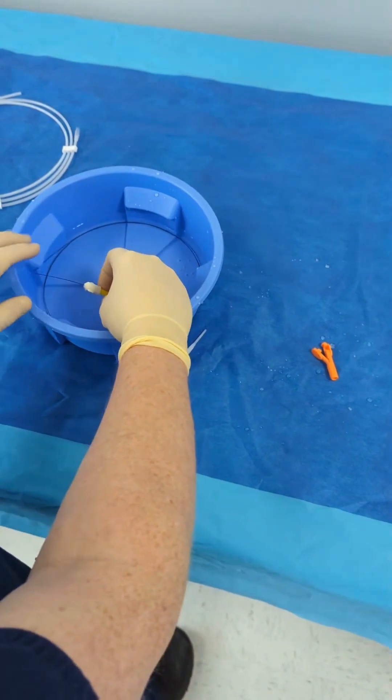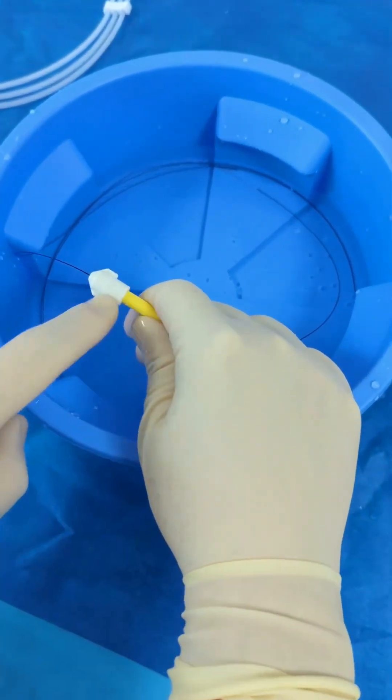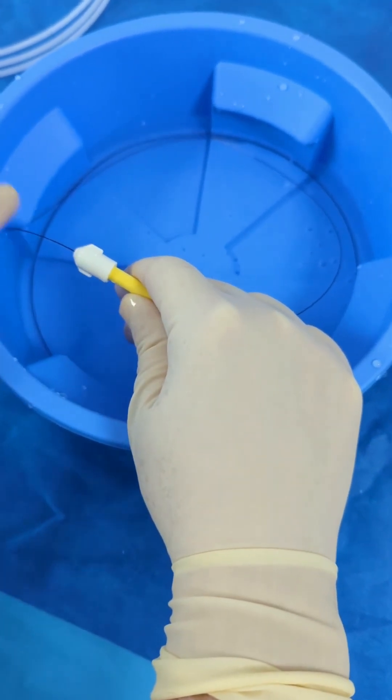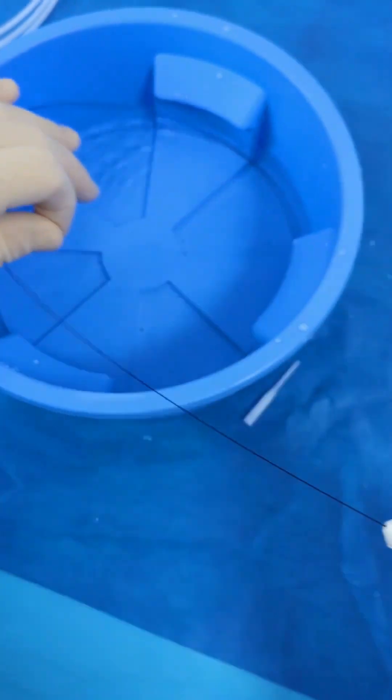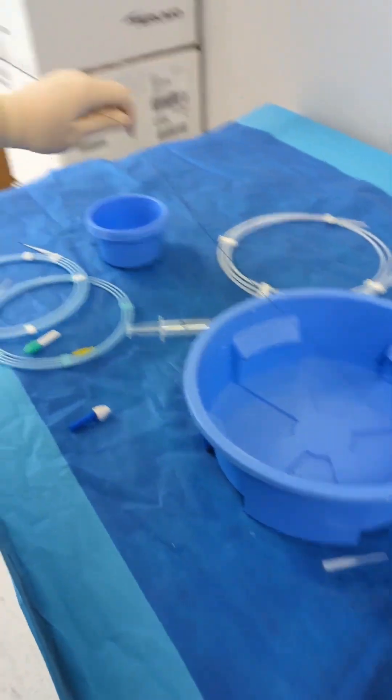And the other tip that I talk about is step three, this is the direction that the wire is facing. So the tip of the wire is this way, so no matter what I do, if I pull the wire out like this, the wire is always pointing towards the doctor.